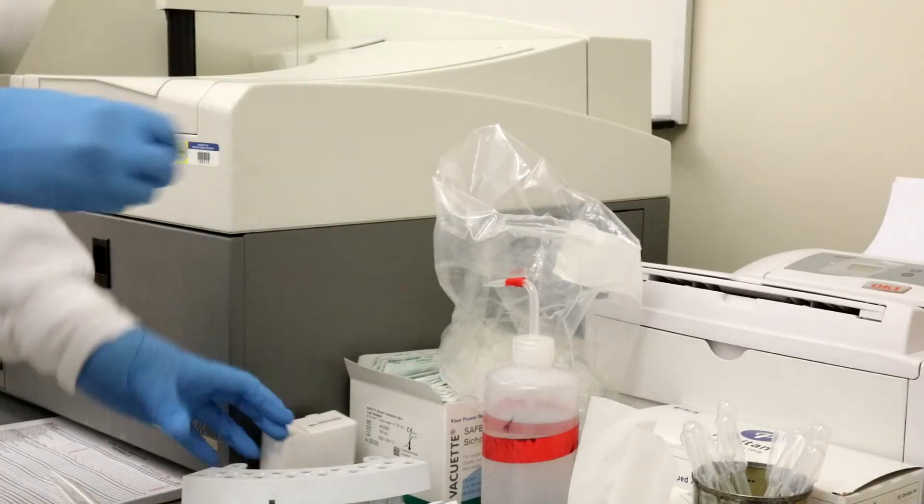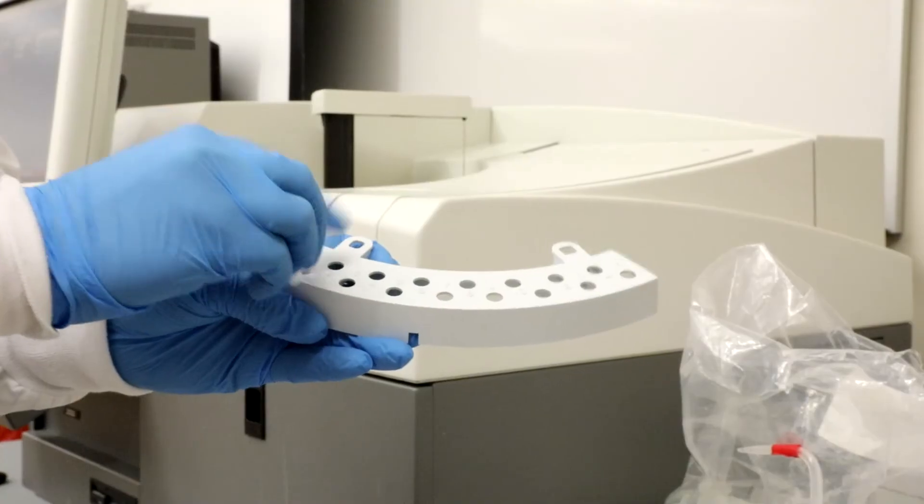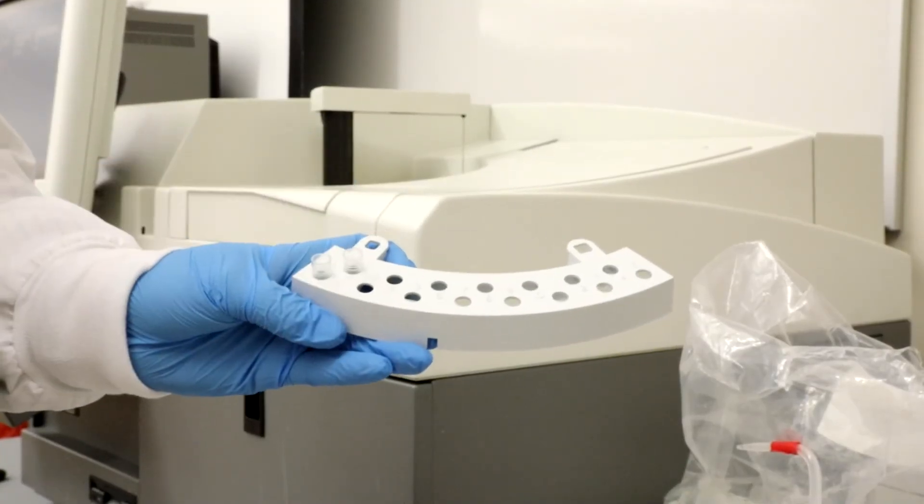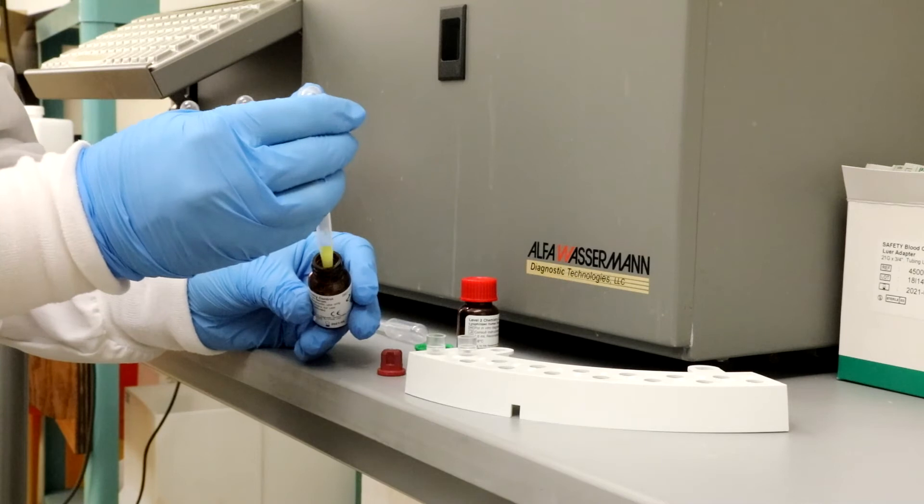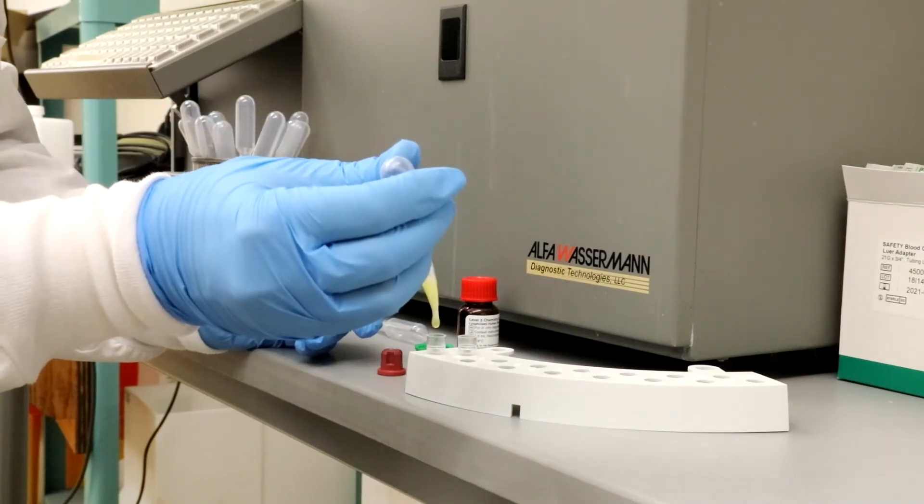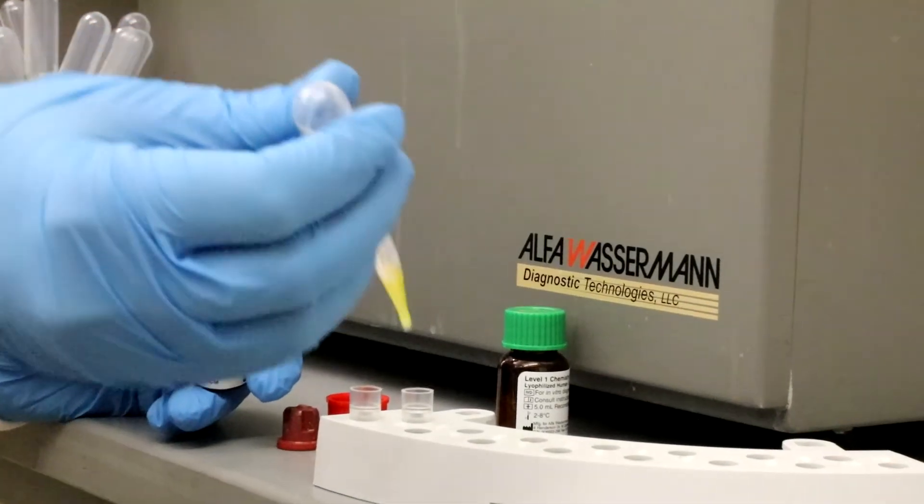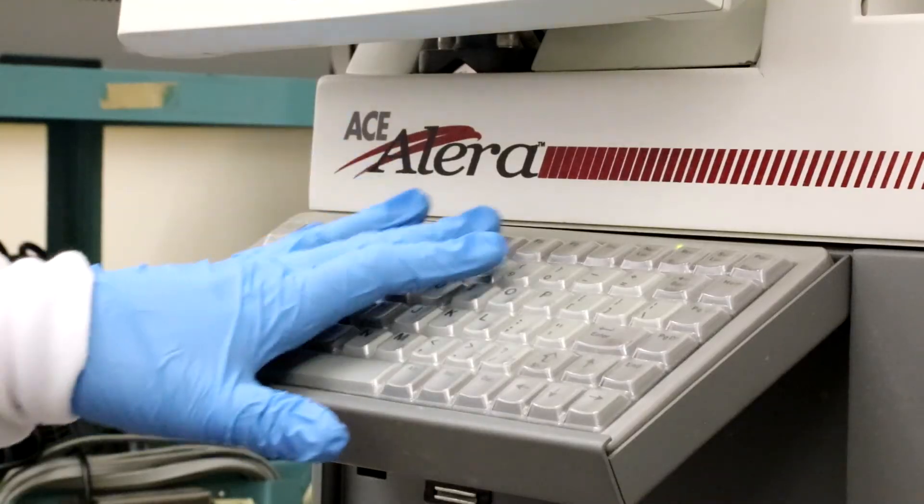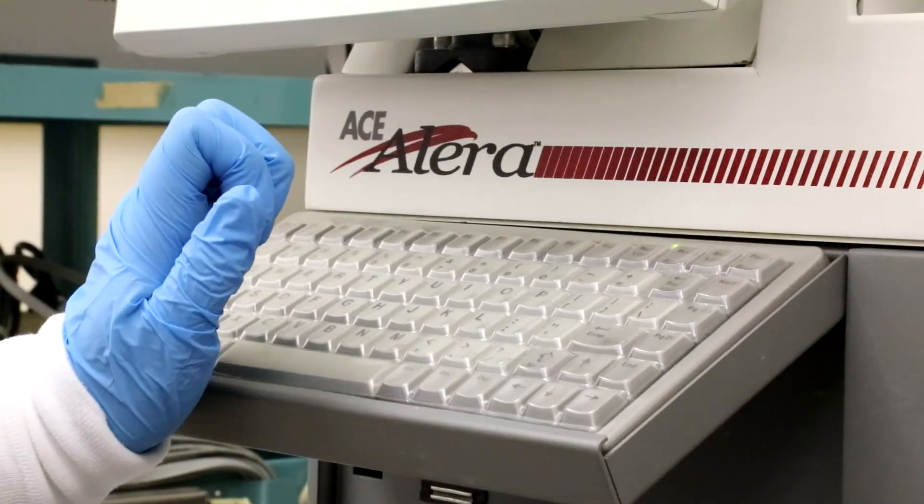Grab two cups and a segment and place them in the slot numbered accordingly. Using the L1 and L2 controls, fill the cups with three to four drops. Press F7 to place the segment.